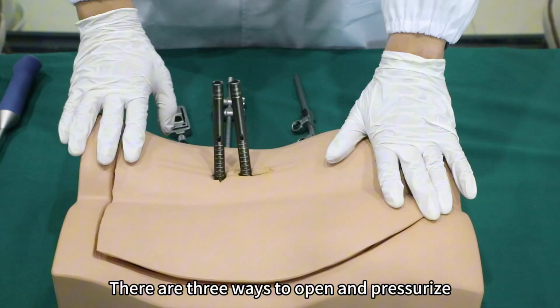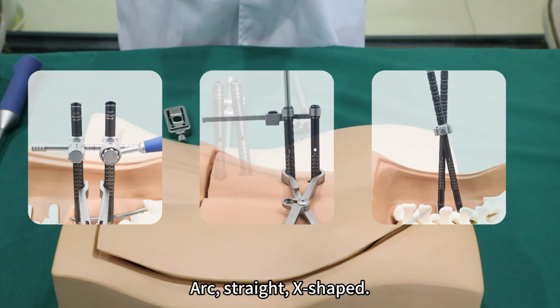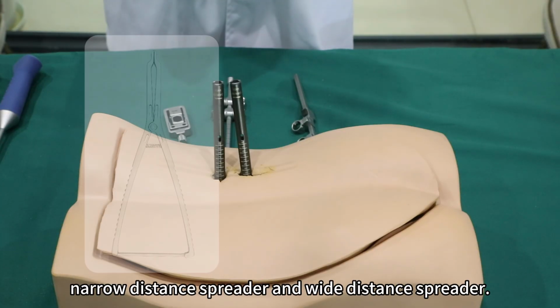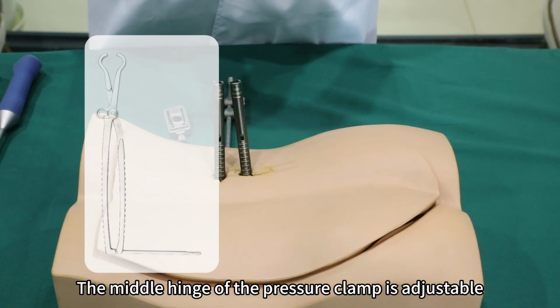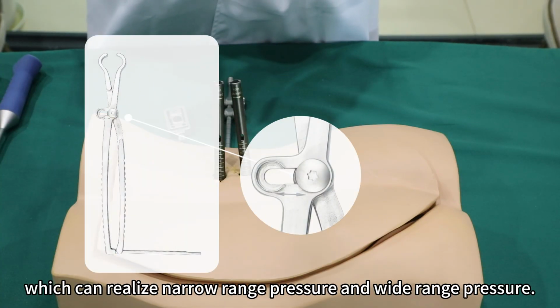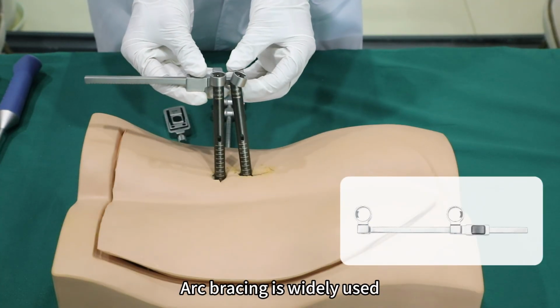There are 3 ways to open and pressurize: arc, straight, X-shaped. There are 2 options for the spreader: narrow distance spreader and wide distance spreader. The middle hinge of the pressure clamp is adjustable, which can realize narrow range pressure and wide range pressure. Arc bracing is widely used.